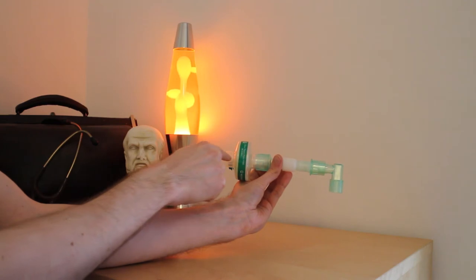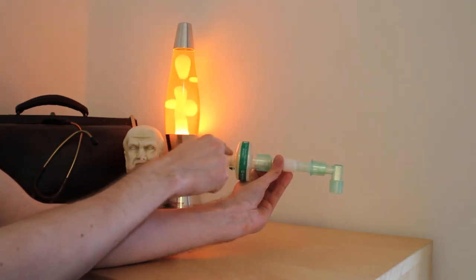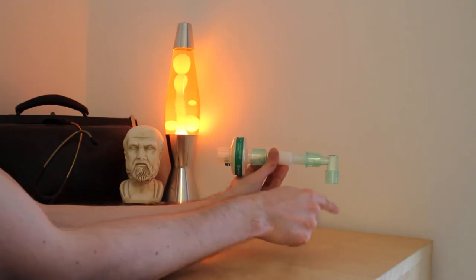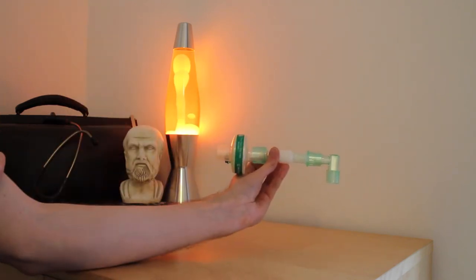The oxygen supply is connected at this end and this connector at the catheter mount end is connected to your patient via an endotracheal tube or laryngeal mask apparatus.